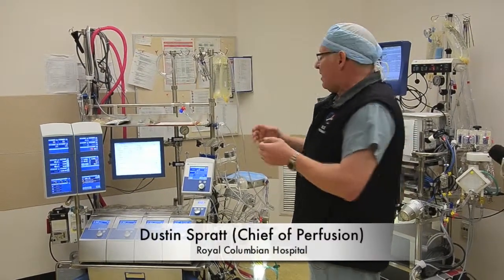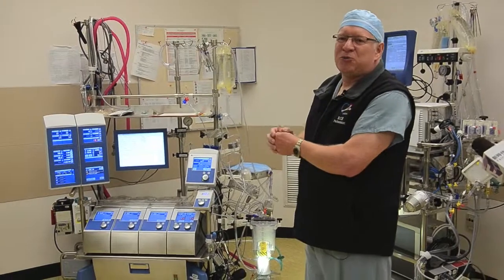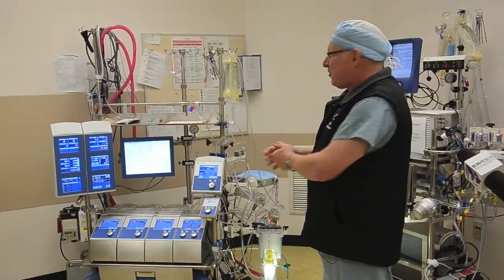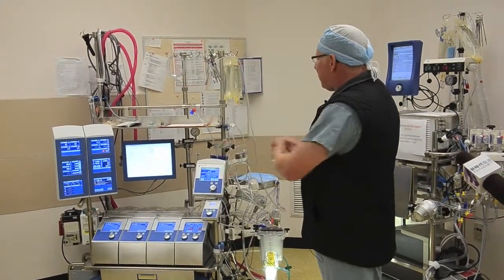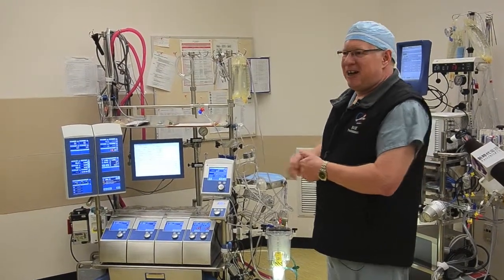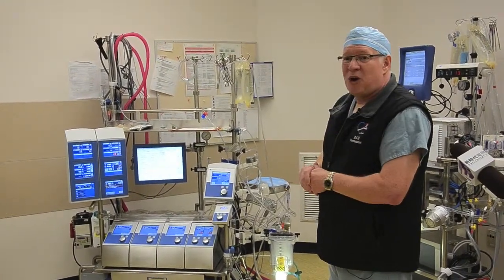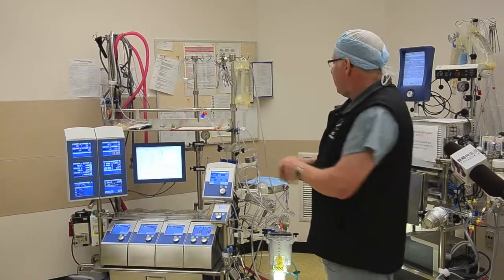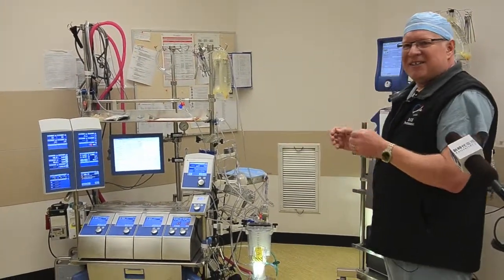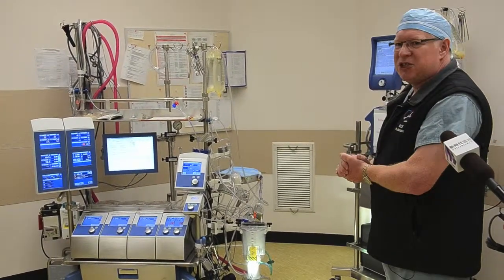Extracorporeal life support. From all of the medical shows, most people are familiar with the heart-lung machine. This is a basic heart-lung machine that you see in open-heart surgery — it's the most commonly used, and it's being used in the cardiac wards next door as we speak. Extracorporeal life support is a pared-down version of the heart-lung machine.